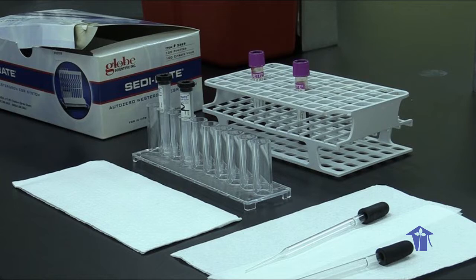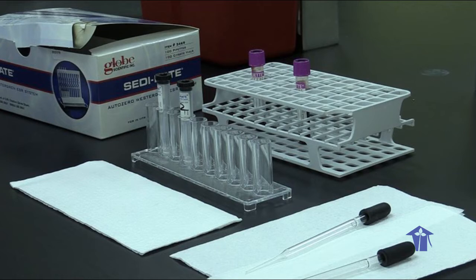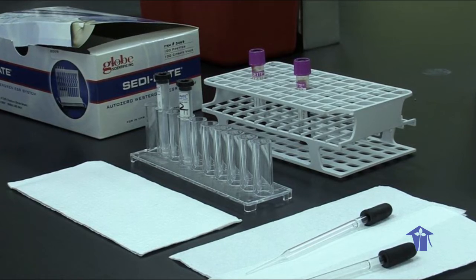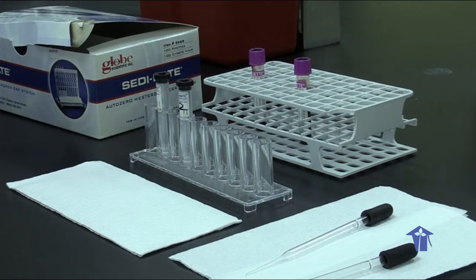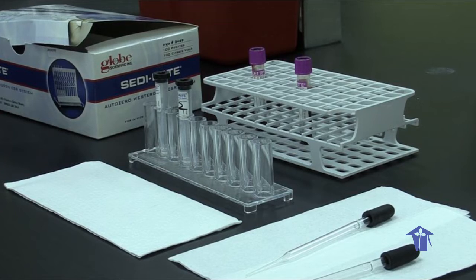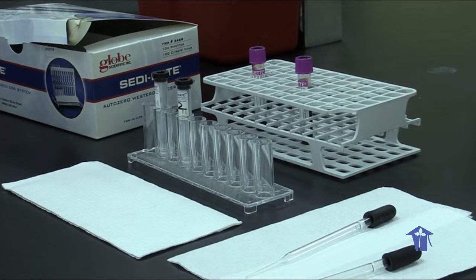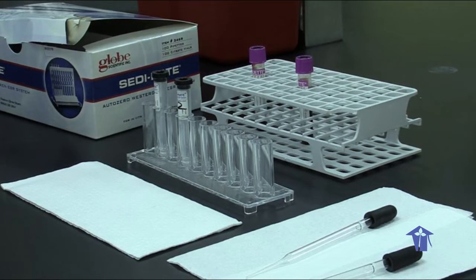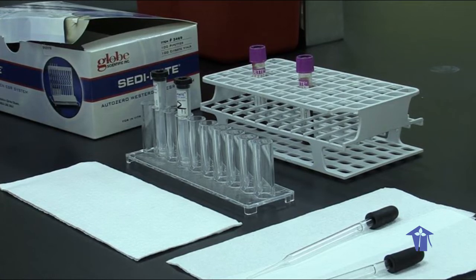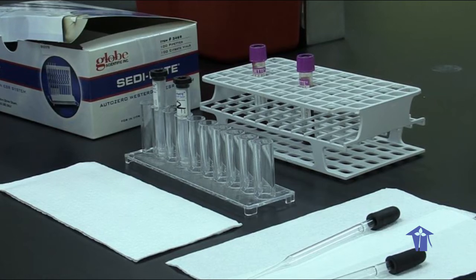It does not indicate what type of inflammation is present, or what organism or what external agent is causing the inflammation. It measures the distance the red blood cells will fall in a specifically made vertical tube over a given time period, and is usually reported in millimeters per hour. The length of time is usually 1 hour for the procedure.